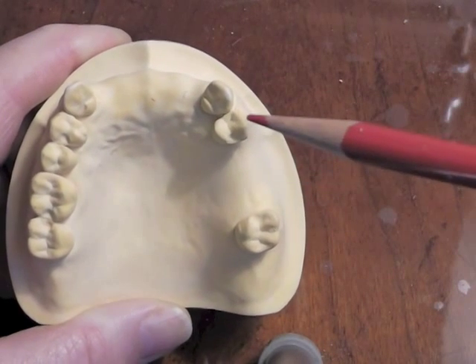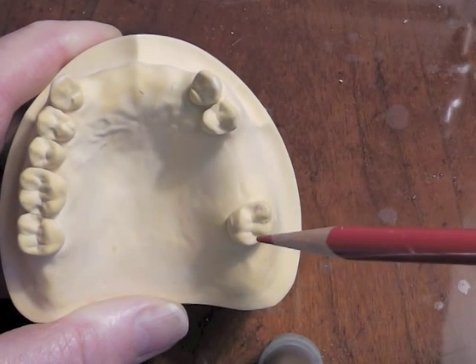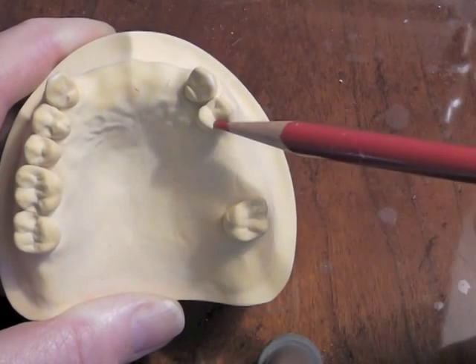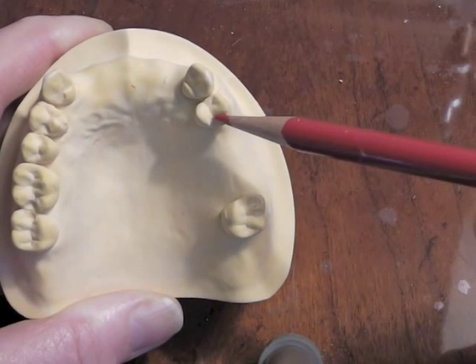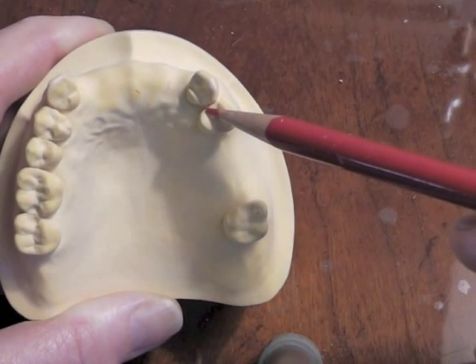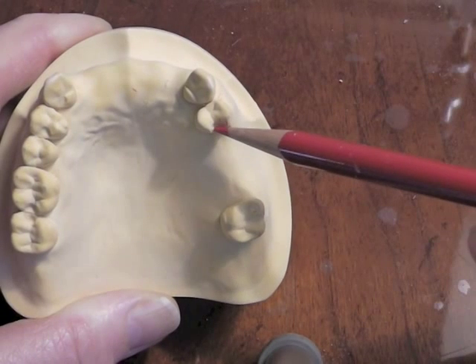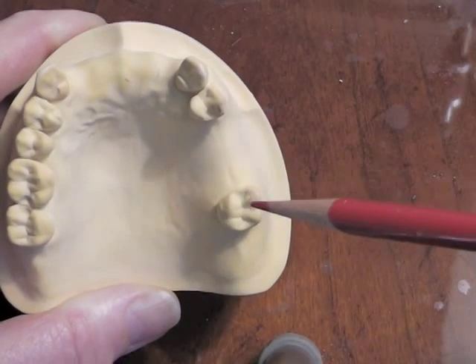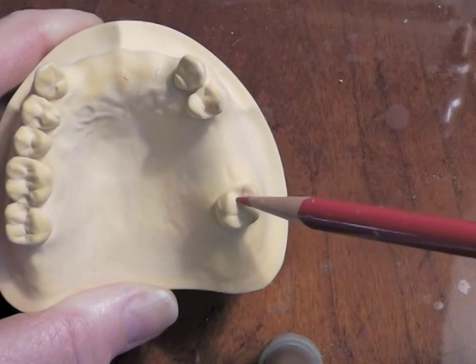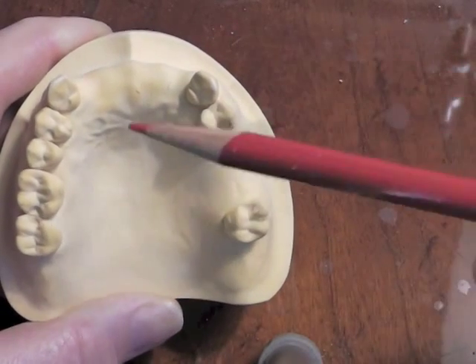We will also have a clasp assembly on this first premolar, if we have the undercuts, and this molar. We will need a rest next to our edentulous area. Every clasp assembly must have a direct retainer, a reciprocal component, a rest, and a minor connector coming up to get to that rest. The same applies on the molar — every clasp assembly must have a direct retainer, a reciprocal component, a rest, and a minor connector bringing the metal up to that rest.